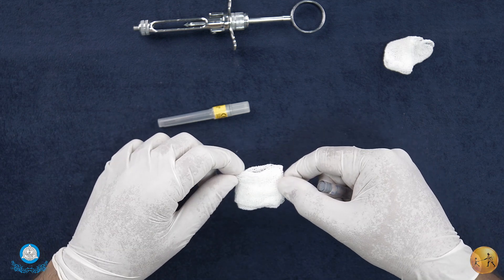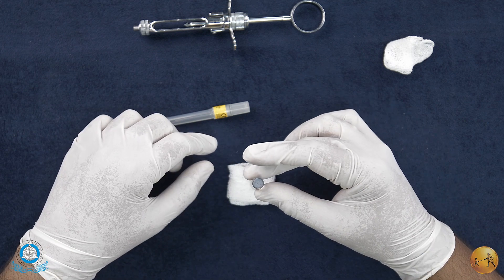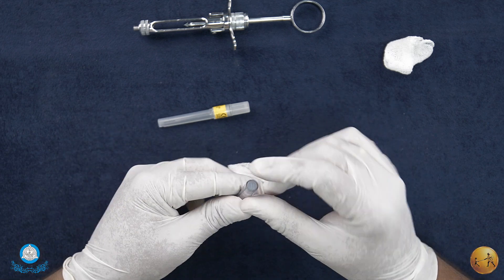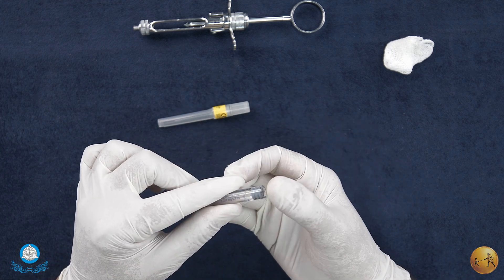Mind you, it has to be moistened and should not be dripping wet with alcohol, and they have to be kept facing down. Now you see the stopper here - if you notice, the stopper is slightly below the rim of the actual cartridge itself.